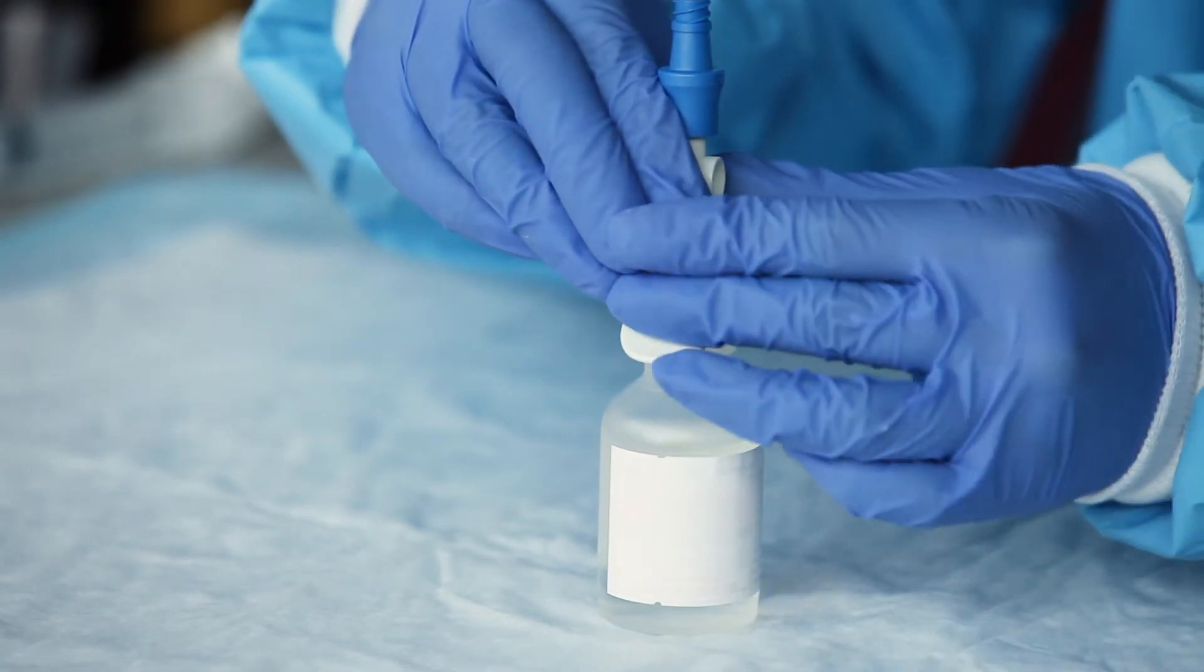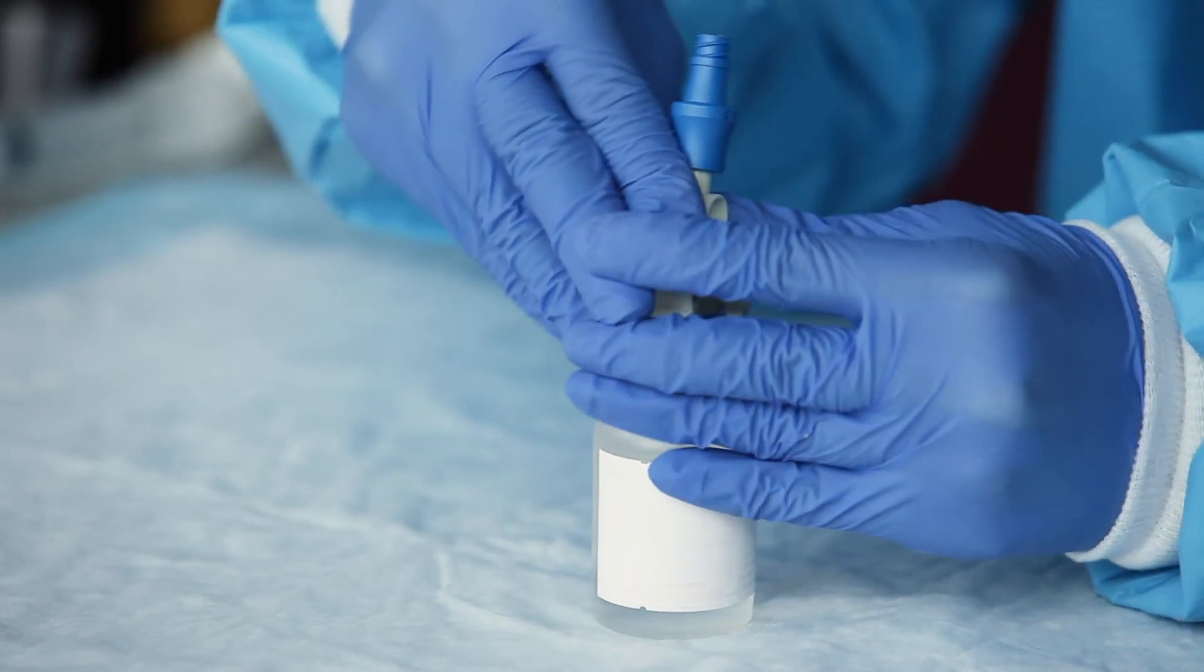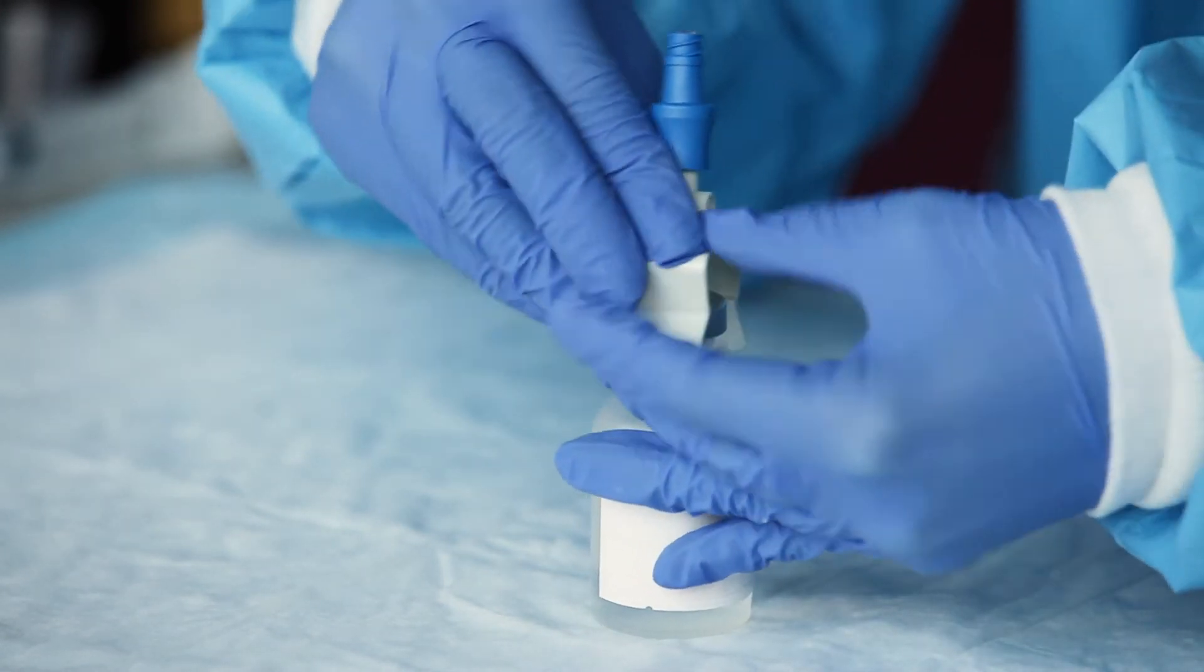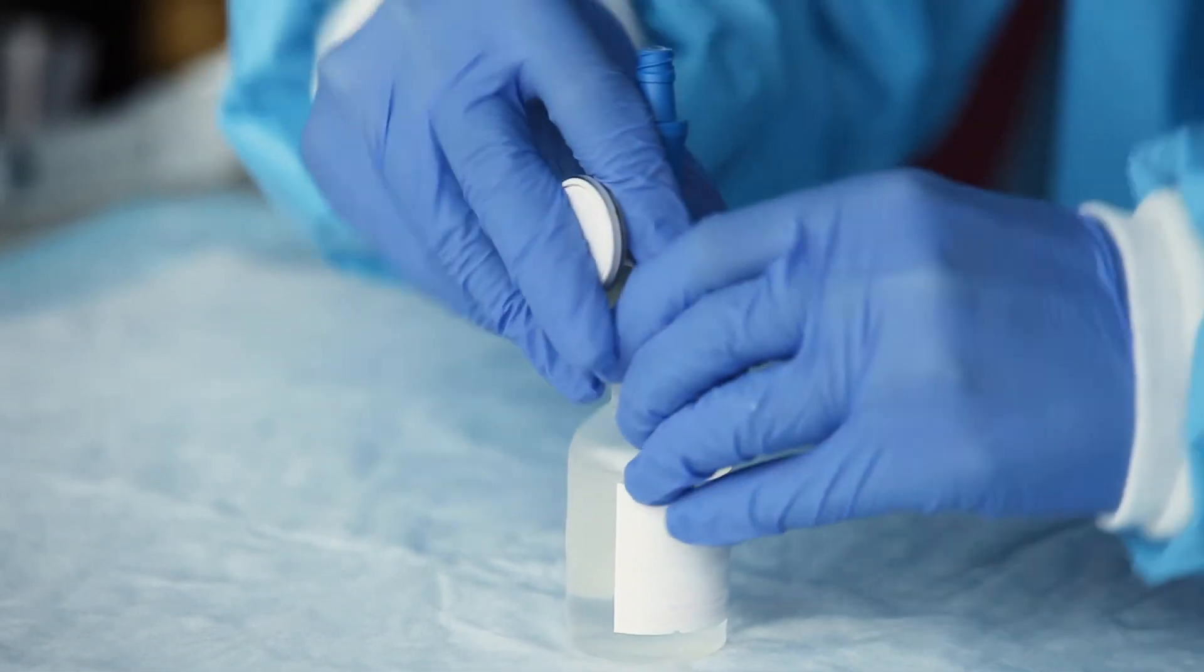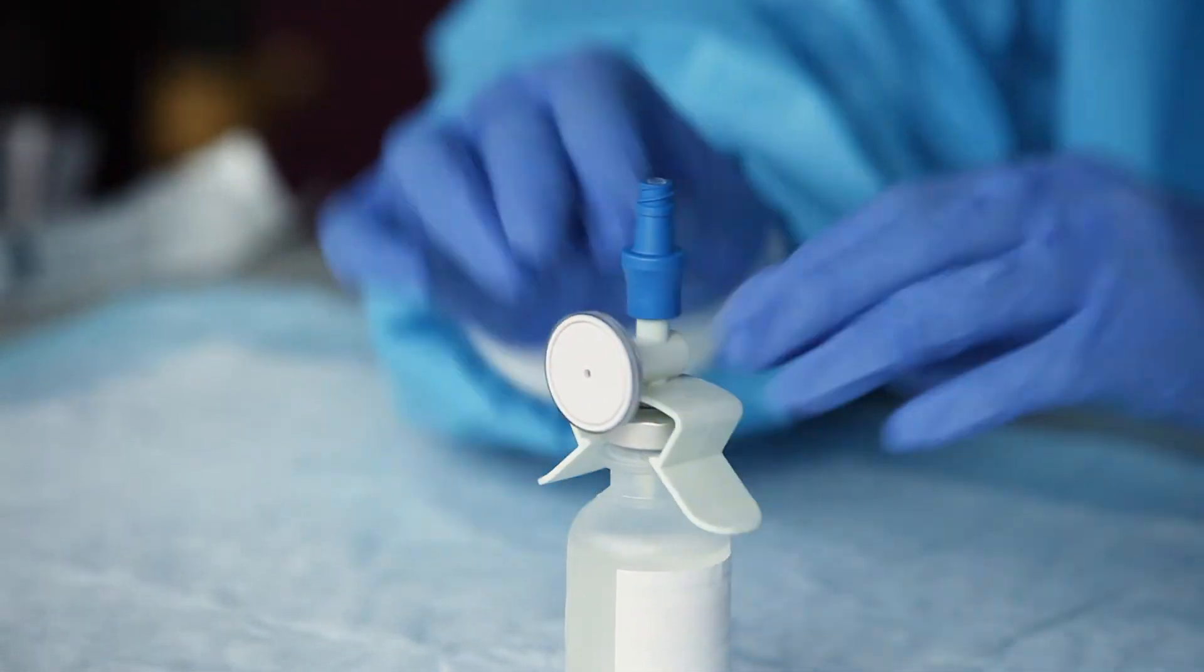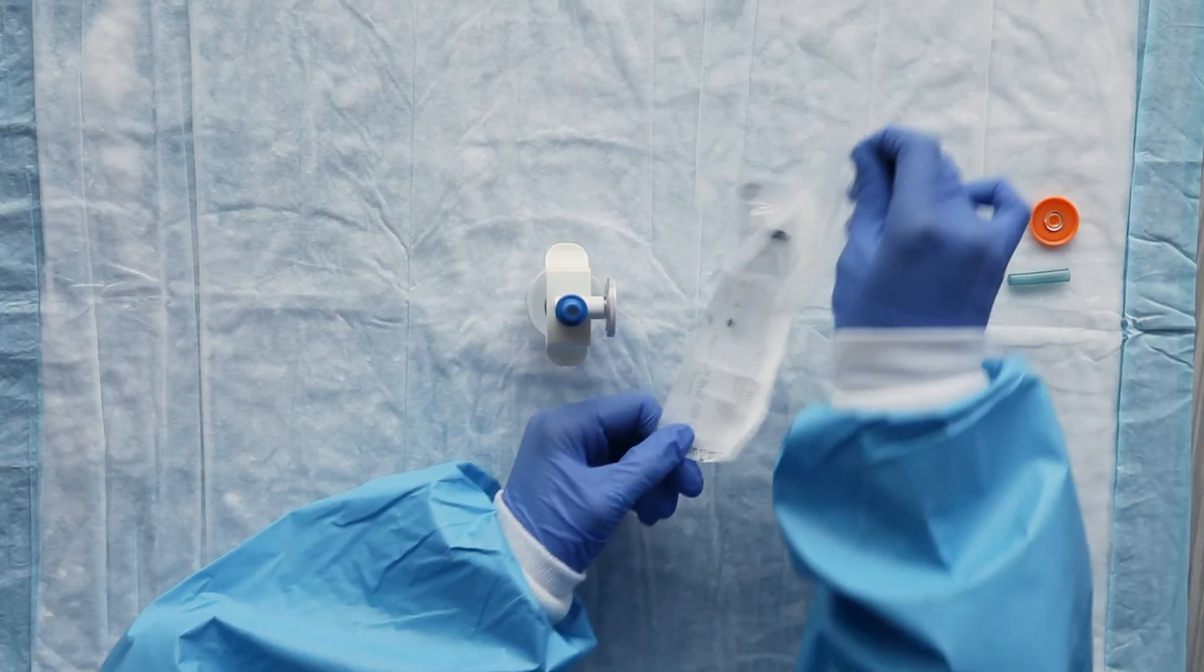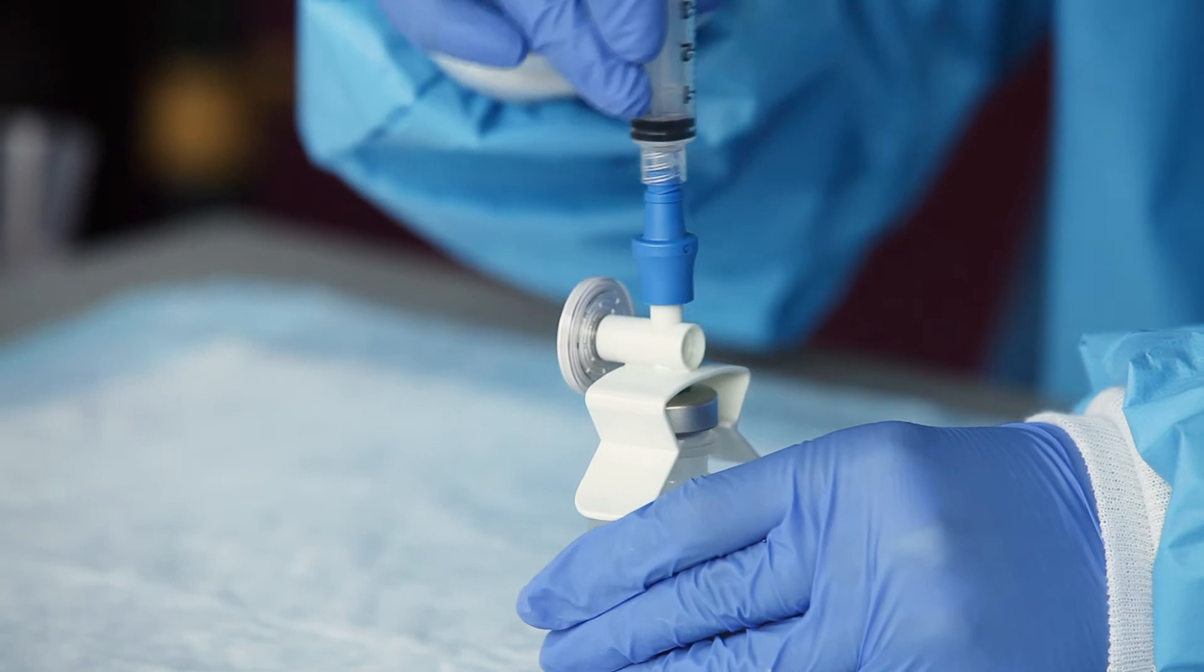Keep the spike straight and push down firmly into the vial until the spike passes through the rubber stopper and the plastic skirt snaps onto the vial. Remove the syringe from its packaging. Attach the syringe to the top of the vial spike by pushing and twisting until secure.